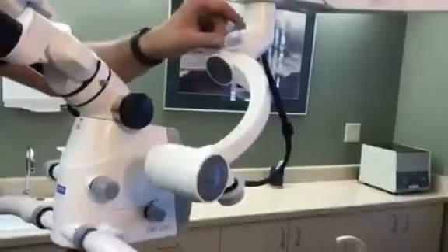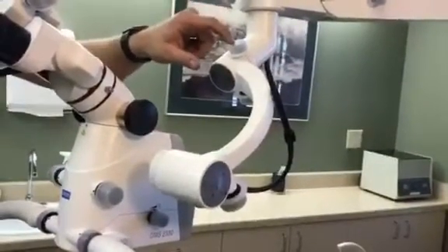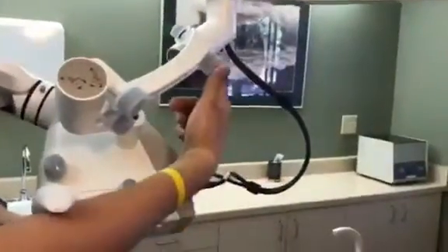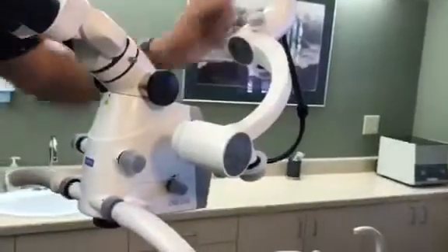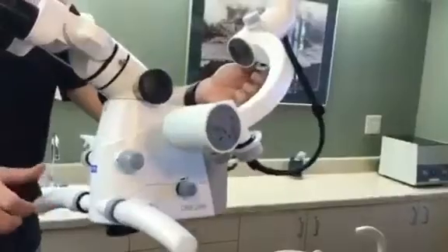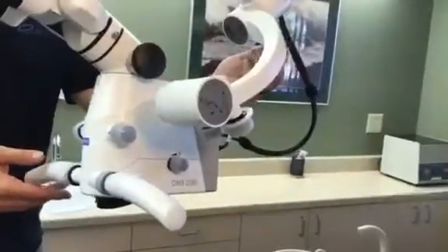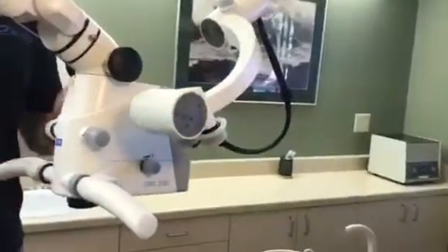This is the tension on top. The way I remember it is that this knob is tiny — T for tightness, T for tiny — and the big knob is for balance, so left and right. If I loosen this and adjust this knob, you'll see the microscope start to move — see how it's starting to shift off of zero? I've already set it up for you to be balanced. If you don't do any attachments or anything, it'll stay balanced.